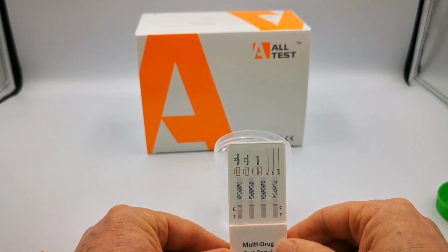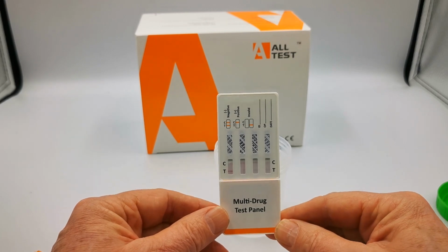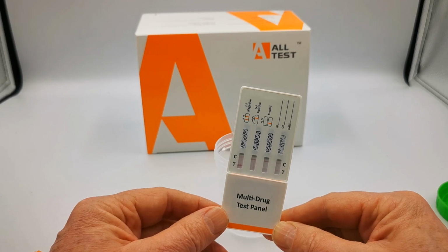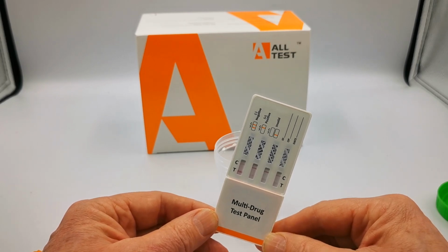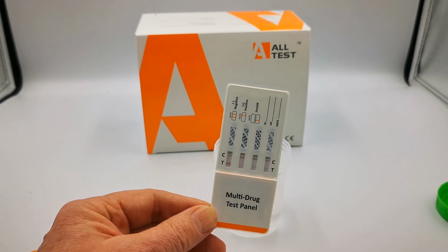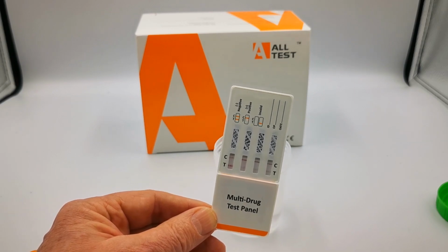Now, if you lay that flat on a surface, you then wait for the test to develop, and the read time for this test for all negative results is as soon as 4 minutes to 5 minutes, but for a positive result you need to give it a full 10-minute development time. So we're going to pause this video now and bring you back on and show you the results showing at the 10-minute read time for this test.